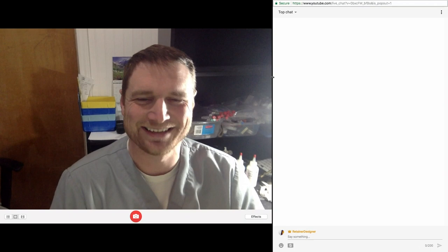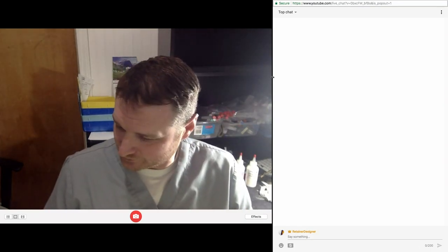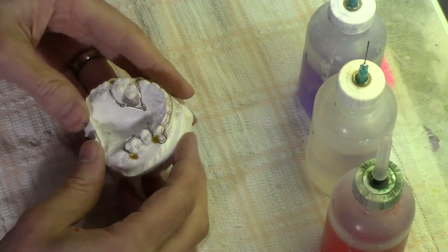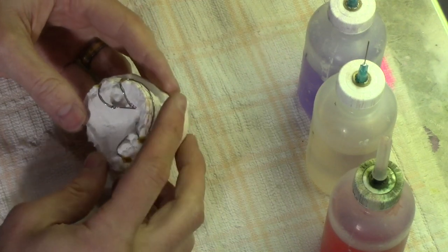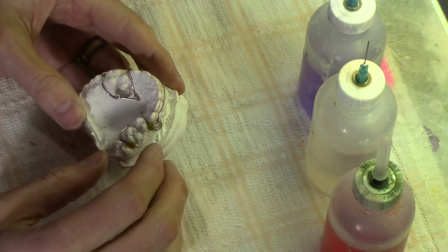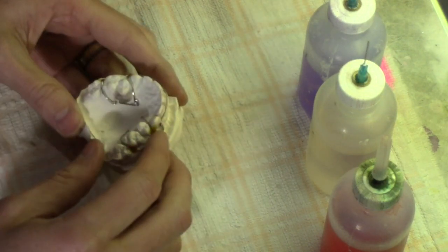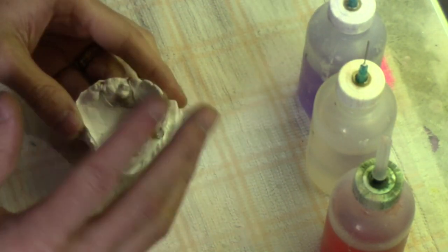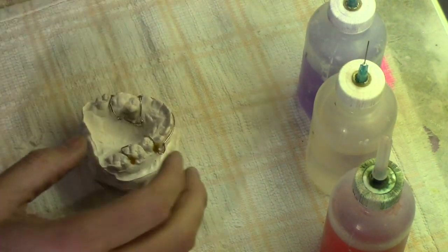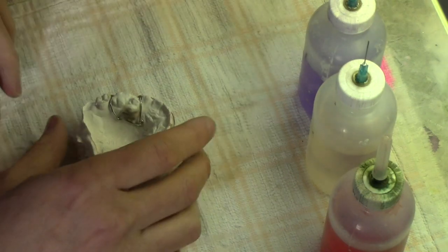I'm getting alerts to my own live stream. So I have my setup here — six appliances all from the same doctor. They all have labial acrylic and they all need name inserts. I'm going to try to insert the name without y'all seeing it, but hopefully you can see how I do my name inserts. Looking at the prescription, it says Luminary Blue.